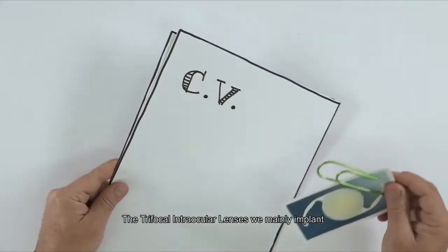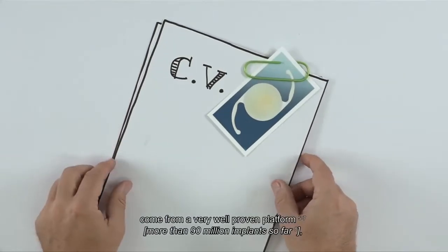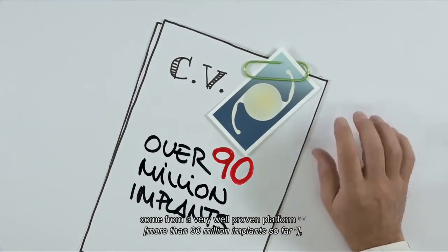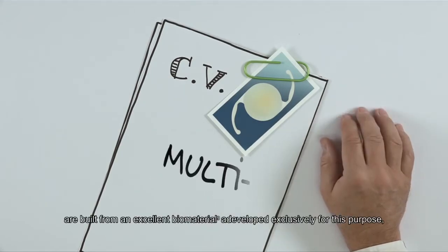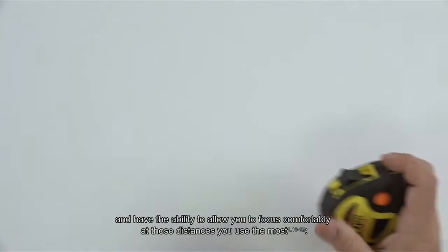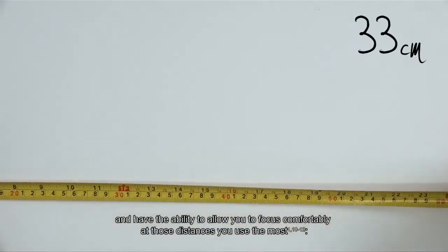The trifocal intraocular lenses we mainly implant come from a very well-proven platform, more than 90 million implants so far, are built from an excellent biomaterial developed exclusively for this purpose, and have the ability to allow you to focus comfortably at those distances you use the most.